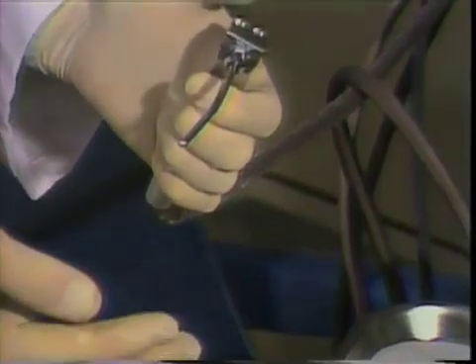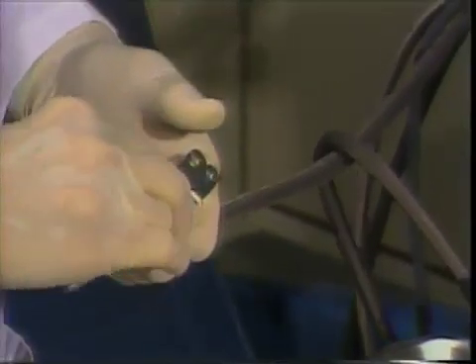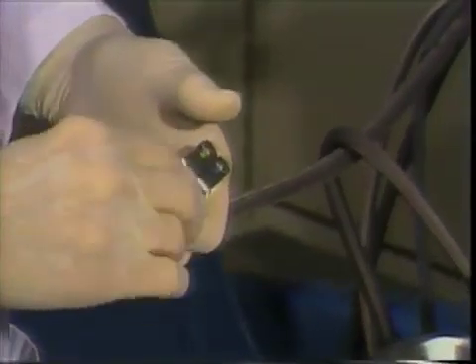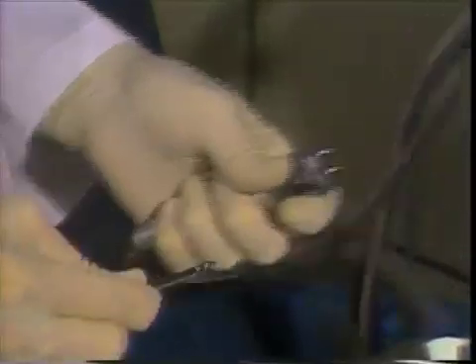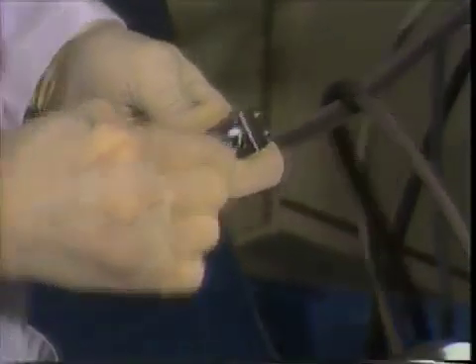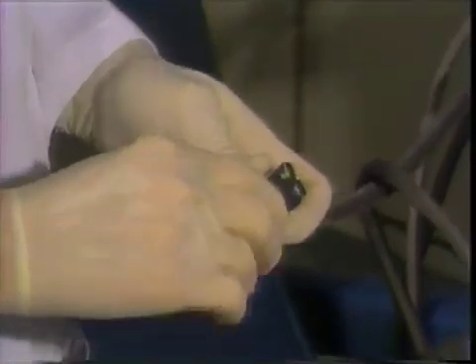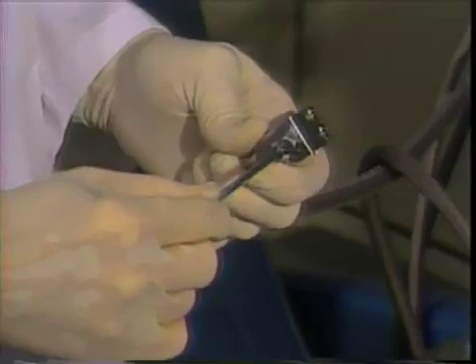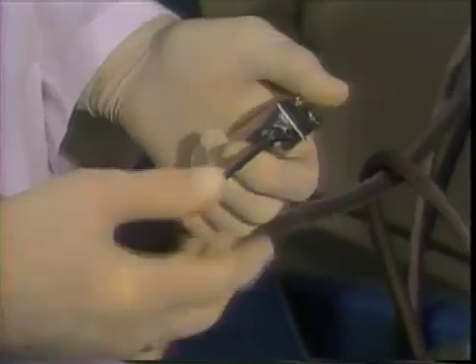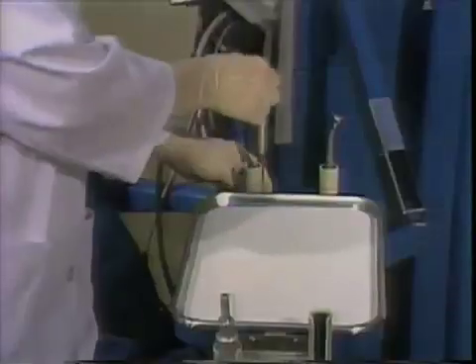If dripping from the syringe occurs, finger loosen the collar, reseat the tip, and finger tighten the collar. Test the three positions again on your hand. If dripping still occurs or the tip seems loose, call the equipment maintenance personnel.